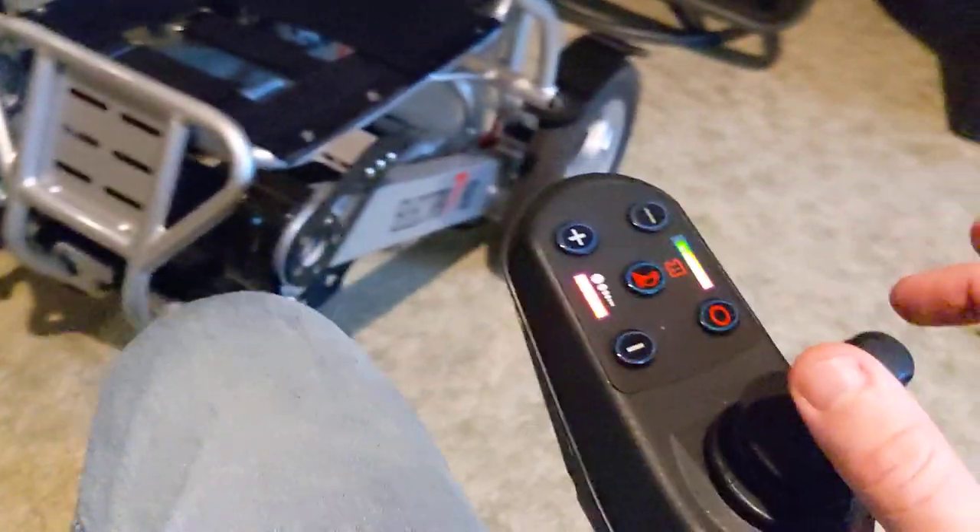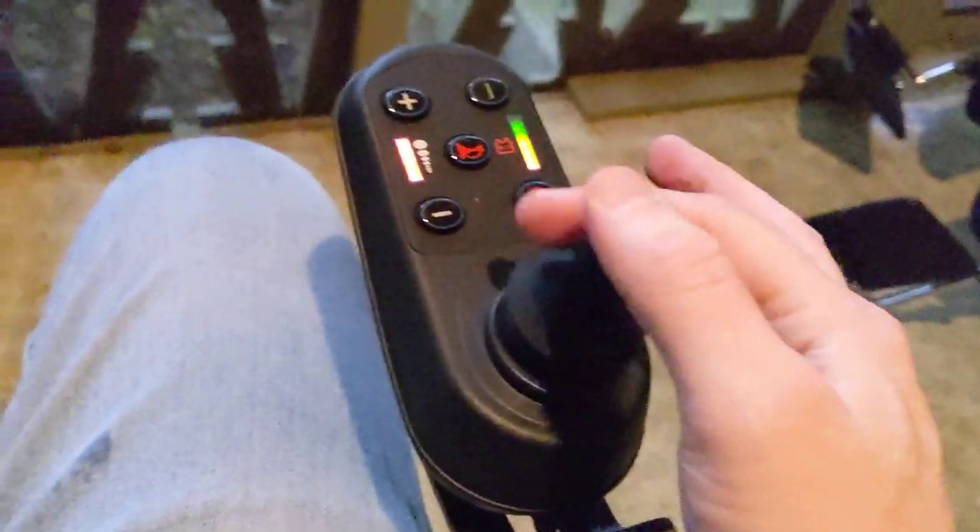In this exceptionally small area — I'd say about a 39-inch radius — I can have the chair do a full turn. The chair doesn't really drift when doing 360 degrees; it stays in place, which is great. You can see the front wheels swivel as I go one direction. It's very simple to maneuver even in a confined space.